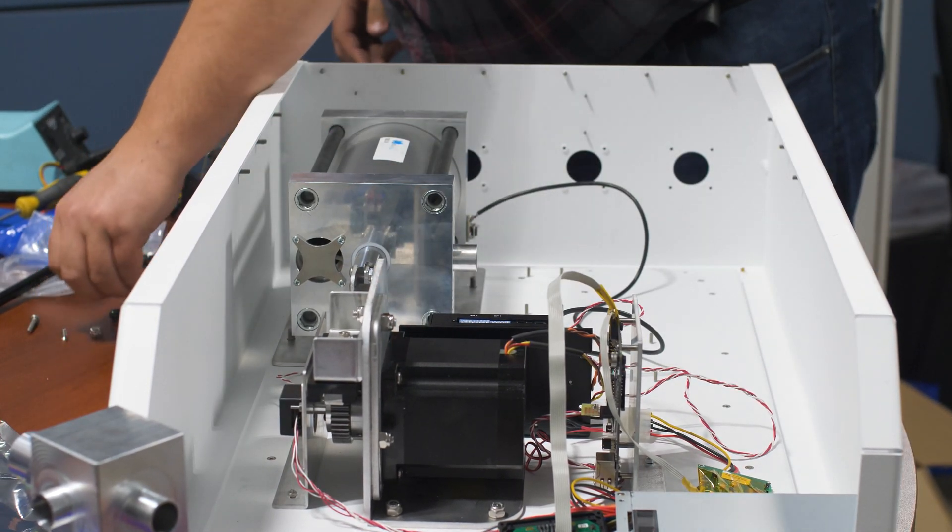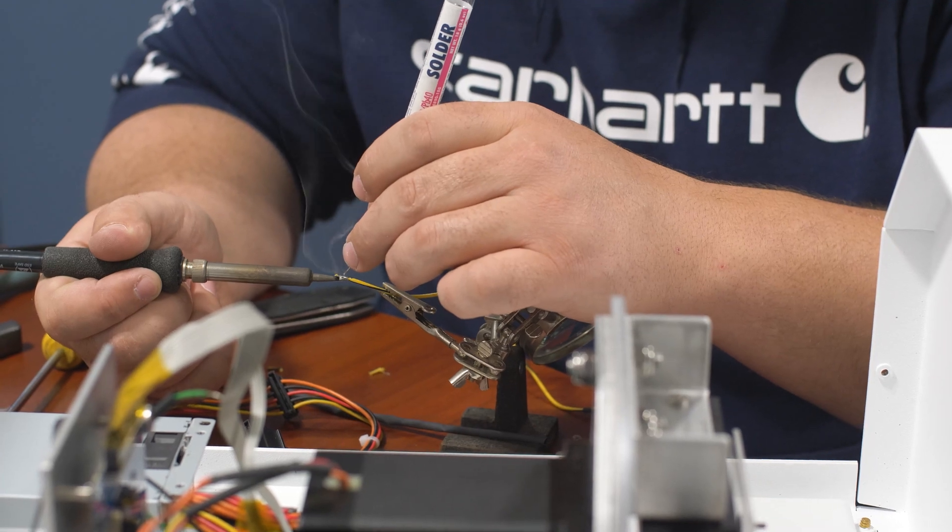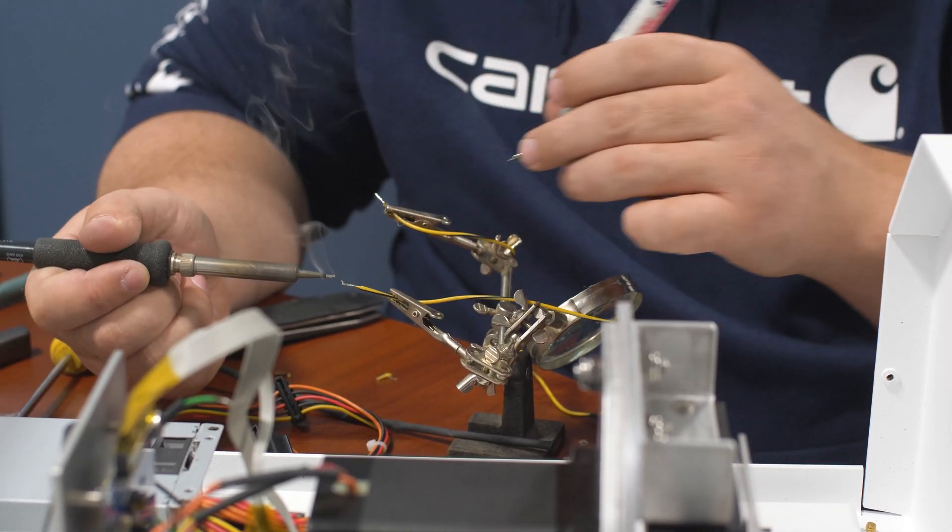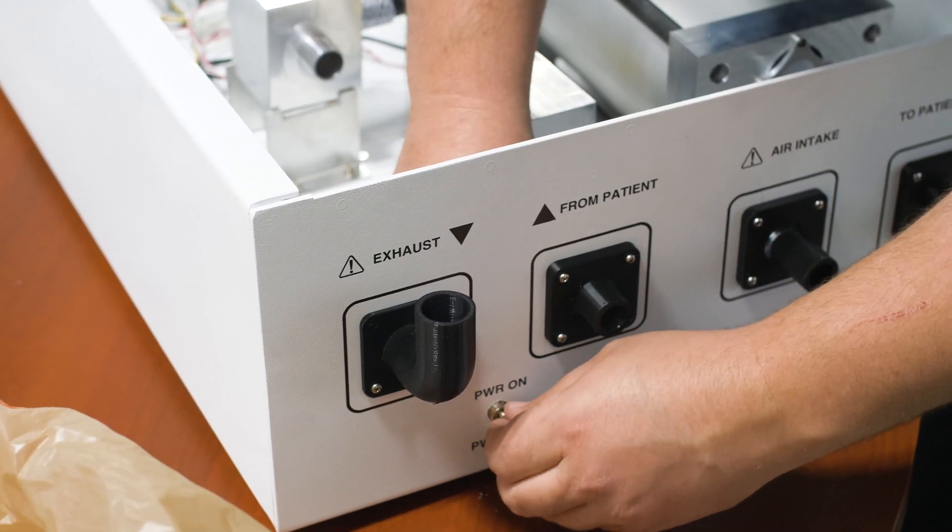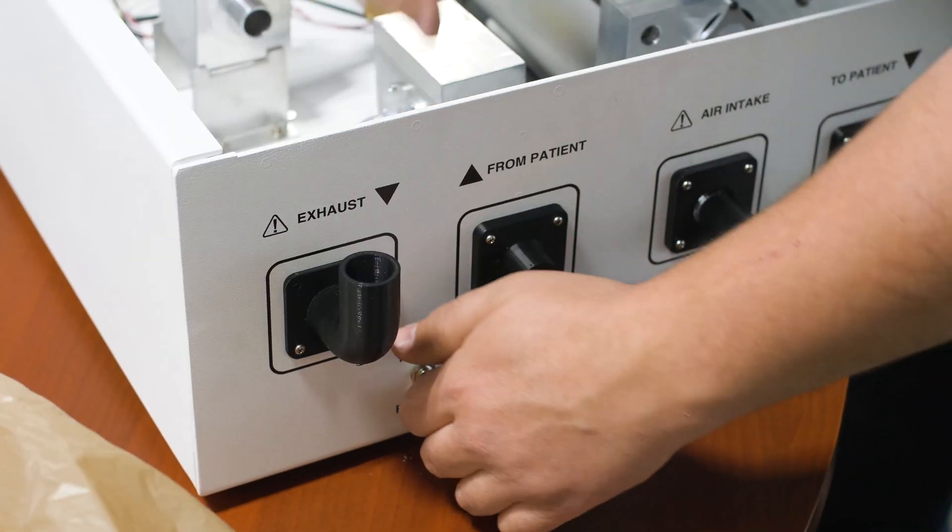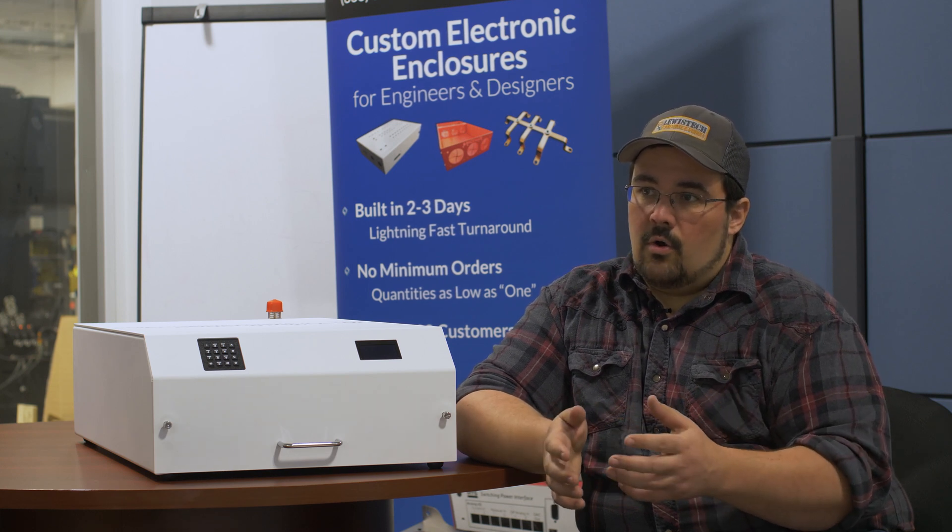The overall design of how we actually pump the air and control the flow is really not anything super new. Designs using piston style like this have been around for a while. Where our advantage comes in is now we have a very simple version of that mechanically that we can use 21st century software and electronics to control.